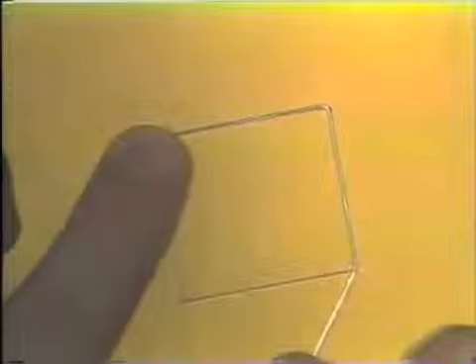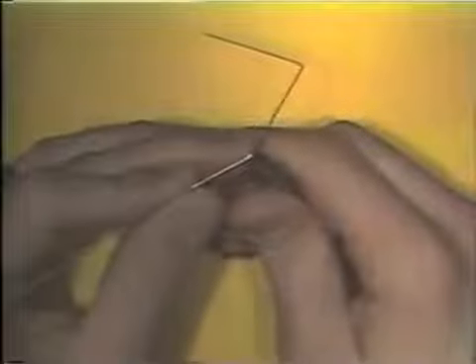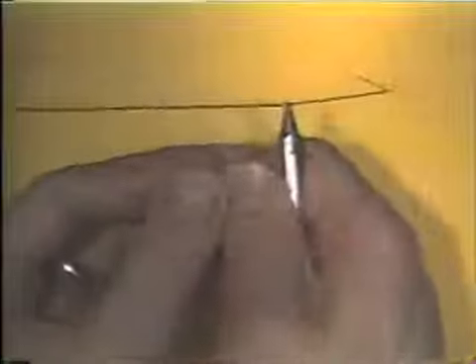At this point, the wire is tried back on the pattern to determine if you're starting the bend in the right spot. To complete the bend, again, the wire is oriented in the beaks of the plier, just as before, and the bend is completed.